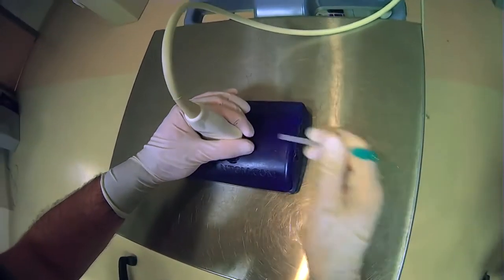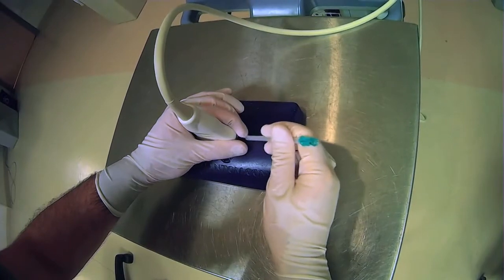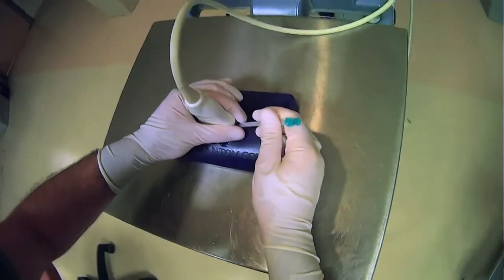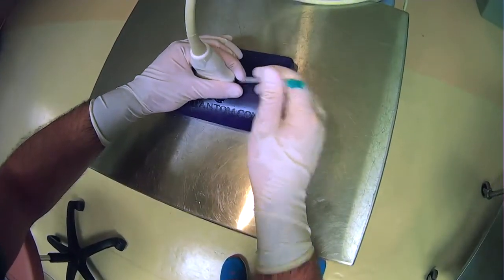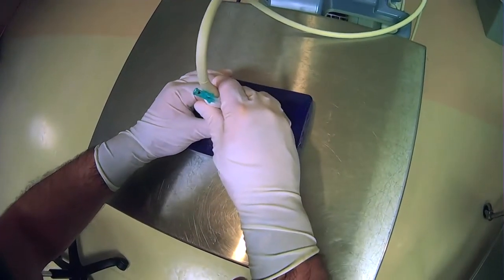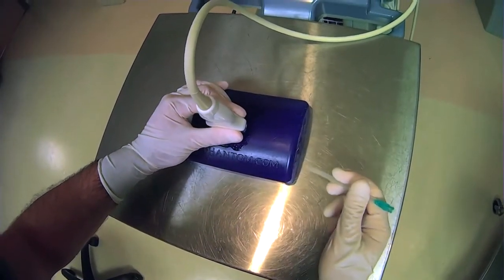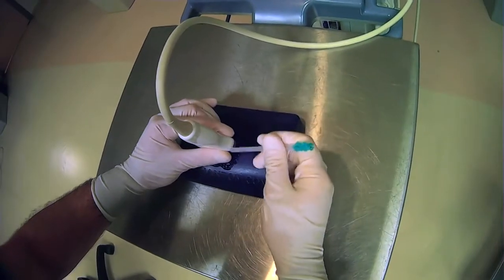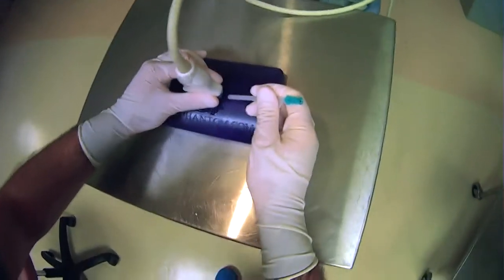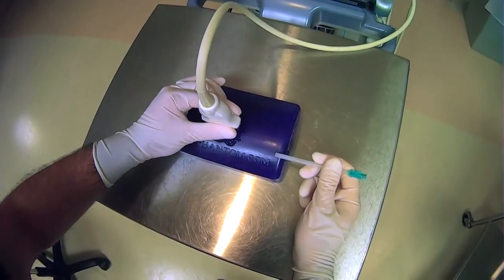You don't want to hold the probe like this because now you're going to have to, let's say you're inserting a needle, you're going to have to put it in between your fingertips. So you want to make sure that your fingers are behind this edge of the ultrasound probe so you don't have to worry about them obstructing your view or your work area.